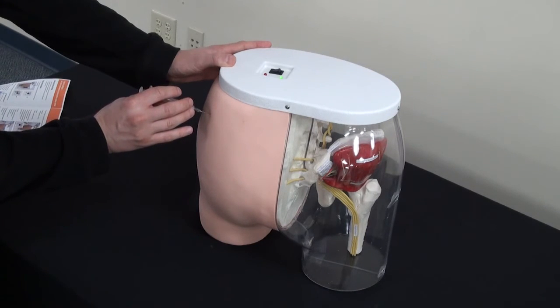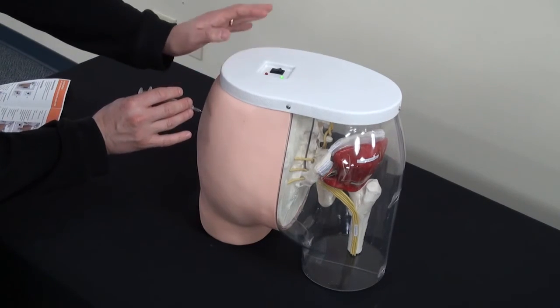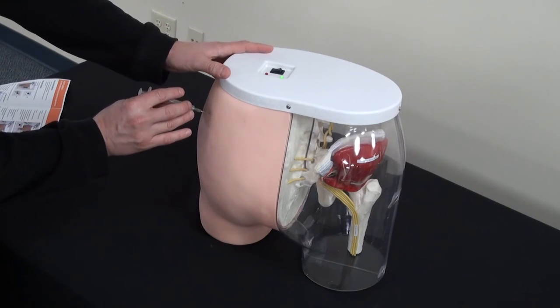You'll get a green light to indicate that you are in the correct area and you are also using the correct depth.